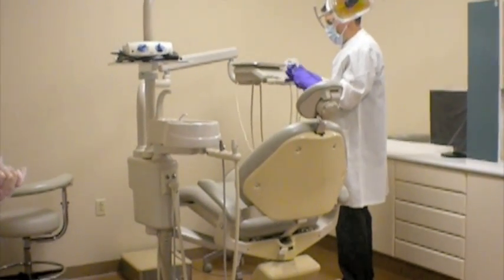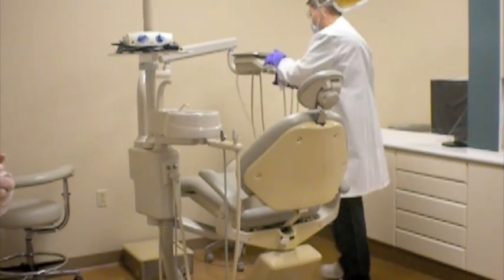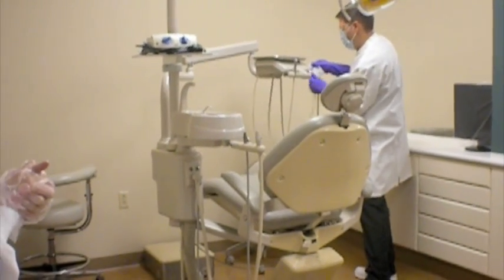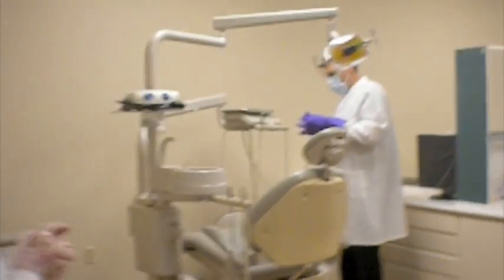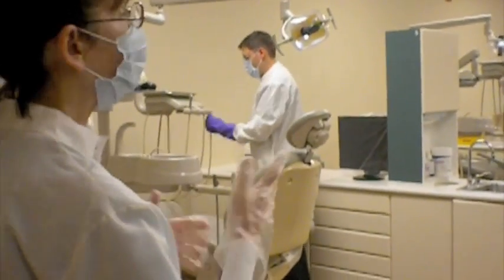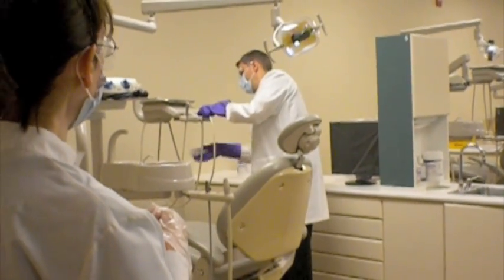Like right now, the air water syringe beginning at the top, and he'll move directly to the back in one sweep. He's wiped the receptacle in which it sits. Your slow speed handpiece hoses, again wiping top to bottom. He's already wiped the receptacle in which it sits, and he's ready to put it back. And you see that long sweeping one direct motion away from the patient.